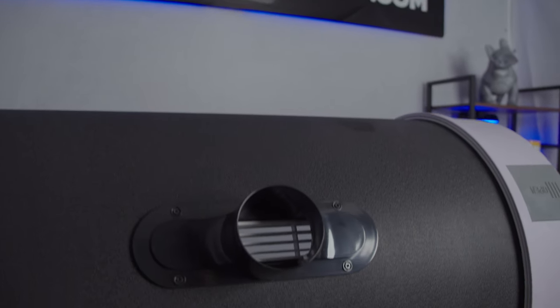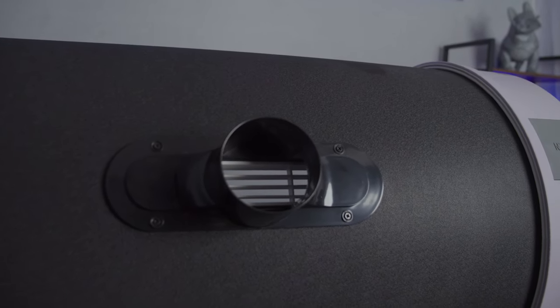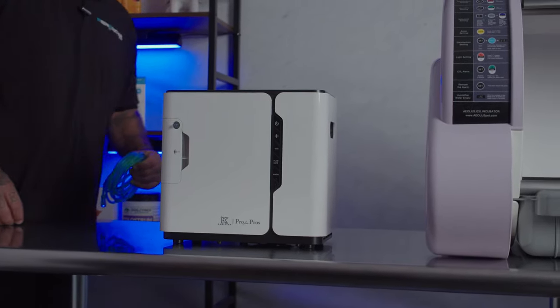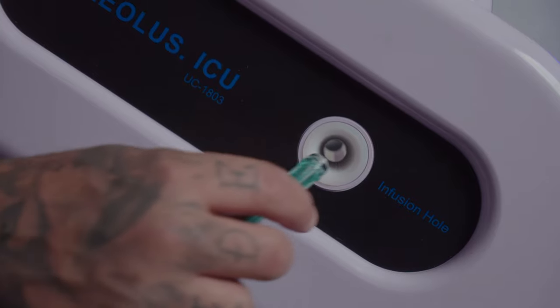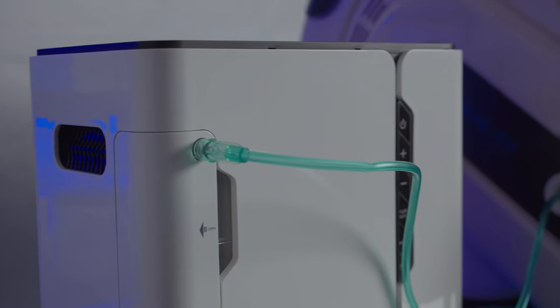Also standard on all Aeolus ICUs is an optional AC unit attachment. Hooking up oxygen has never been easier. Included in both the 1801 and 1803 is an easy-to-use infusion port. Simply take your oxygen tubing, insert it into the infusion port, and turn on your oxygen machine.